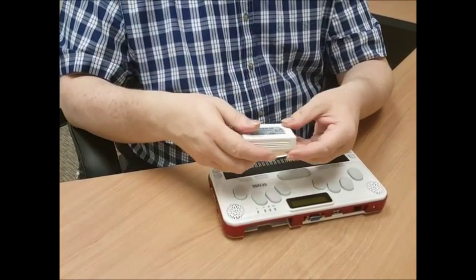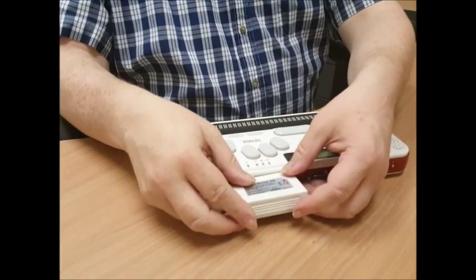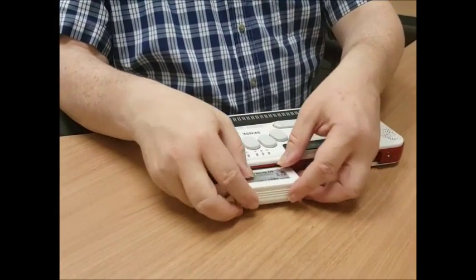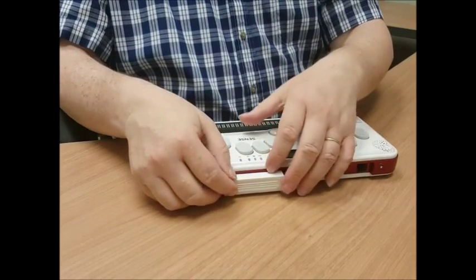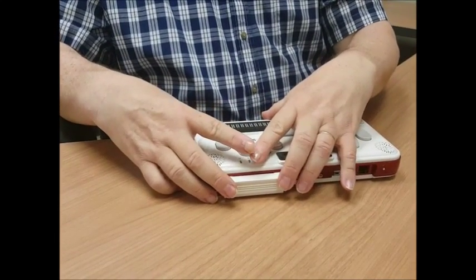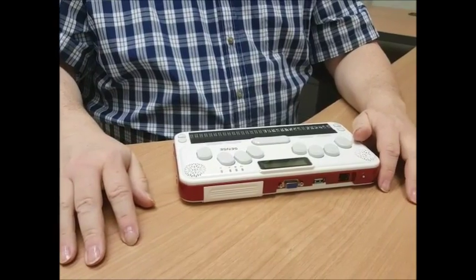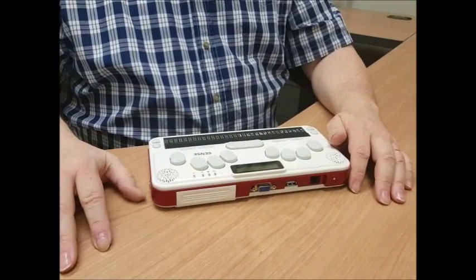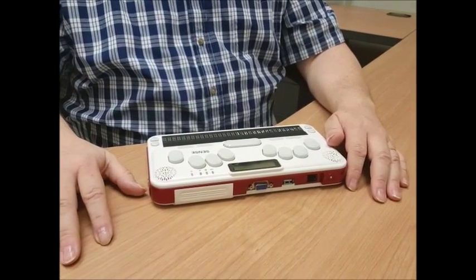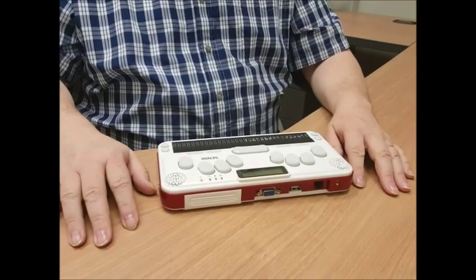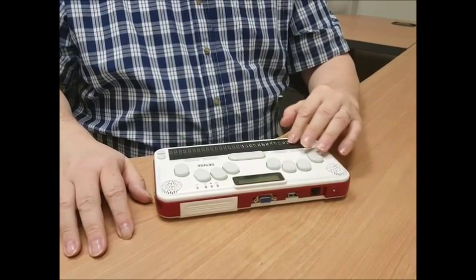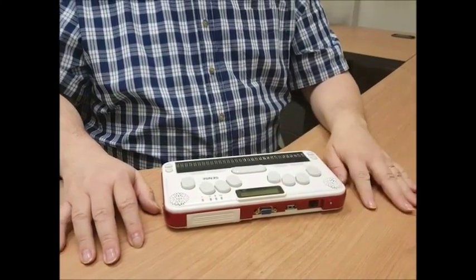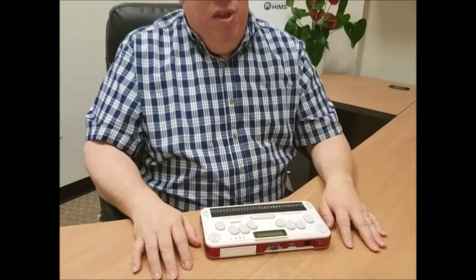So all right, holding it this way, we then come back here. And getting it in there, we just slide it all the way in. And we hear a little beep and the unit actually vibrates. And so now it's booting for the first time. This takes about 30 seconds or so to come up for the very first time. But then after that, when you turn off the unit and turn it back on, it takes maybe three seconds or so to come back on. Only when you have to do a hard reboot or a reset of the unit will it take this 30 second countdown.